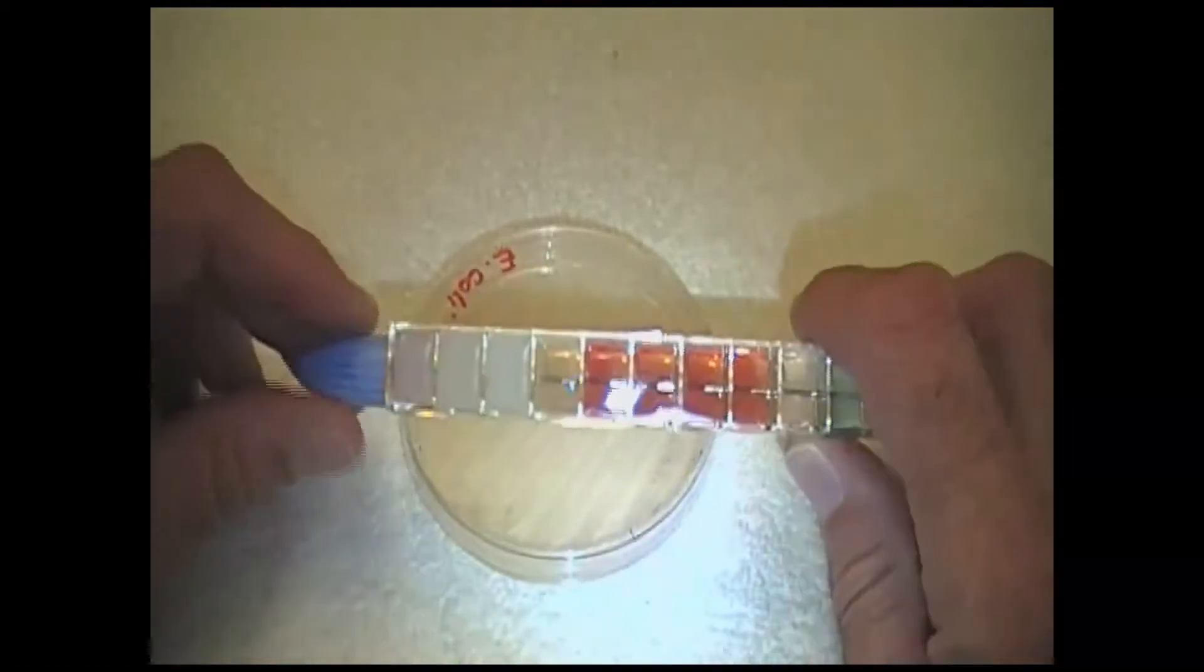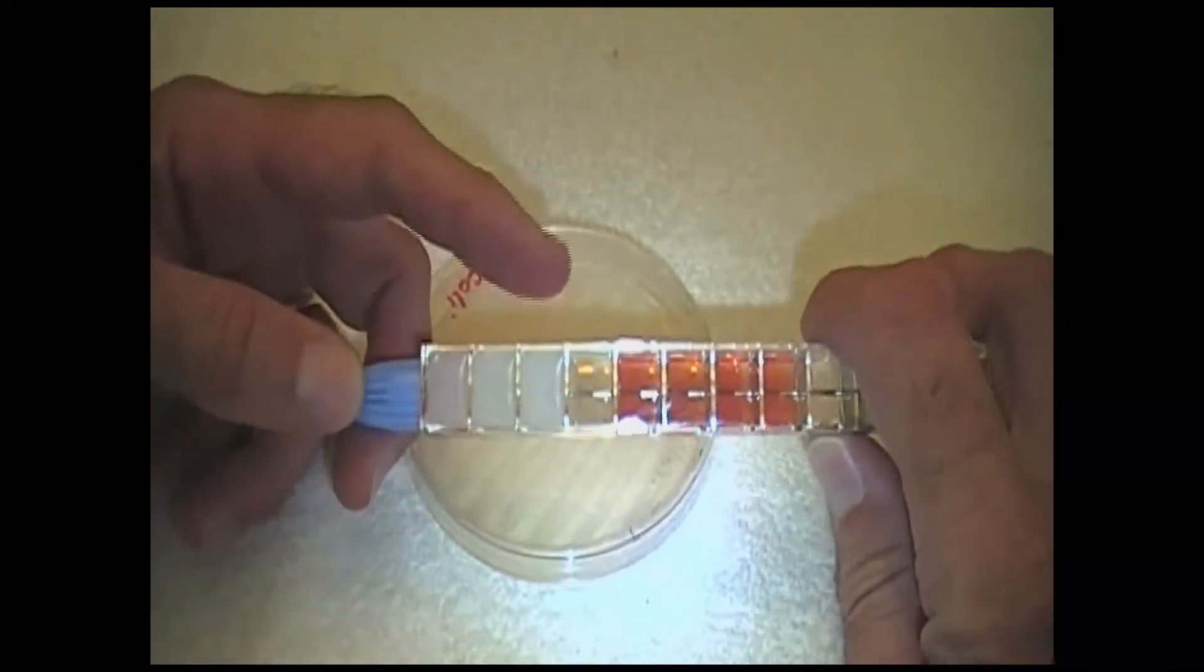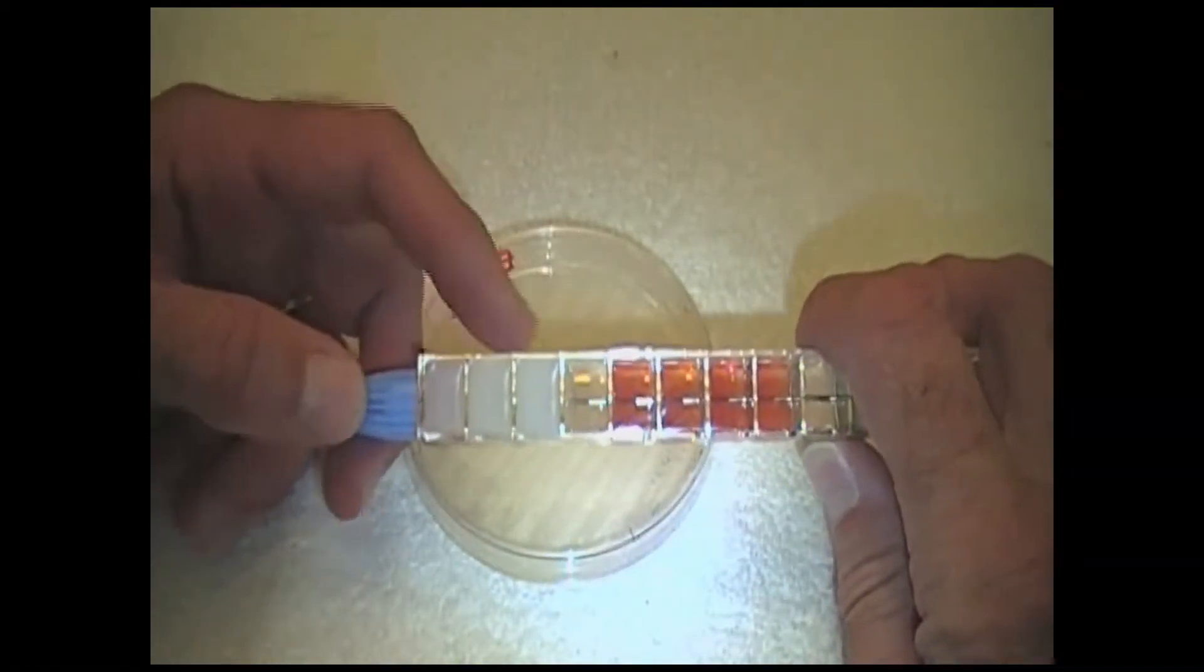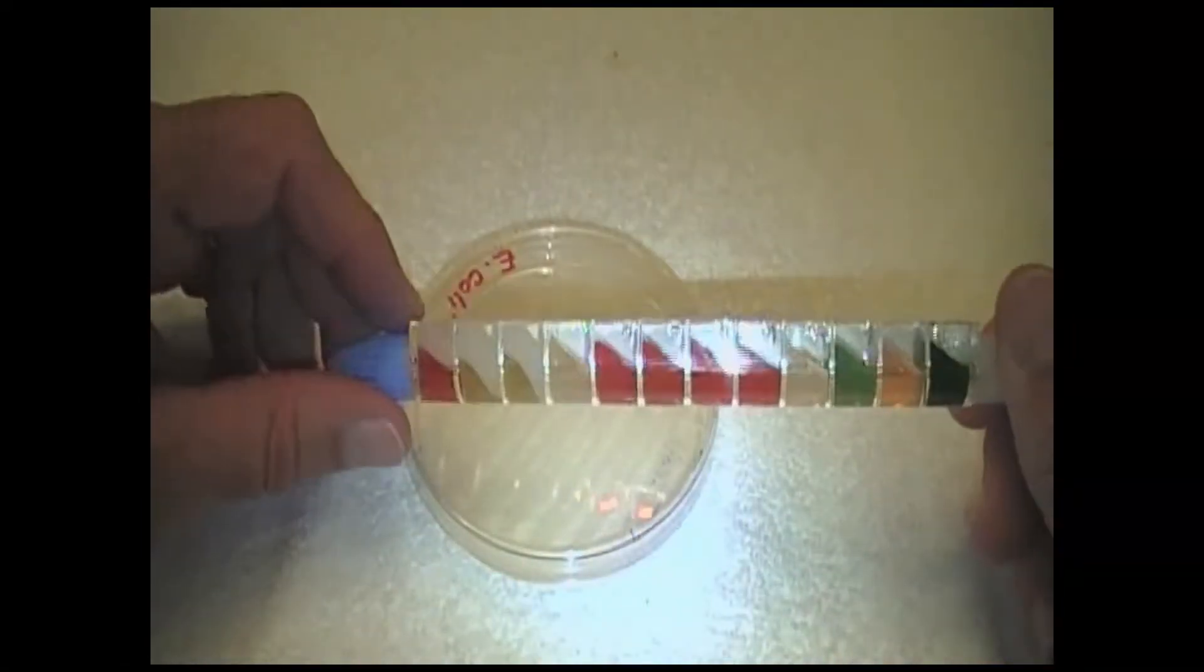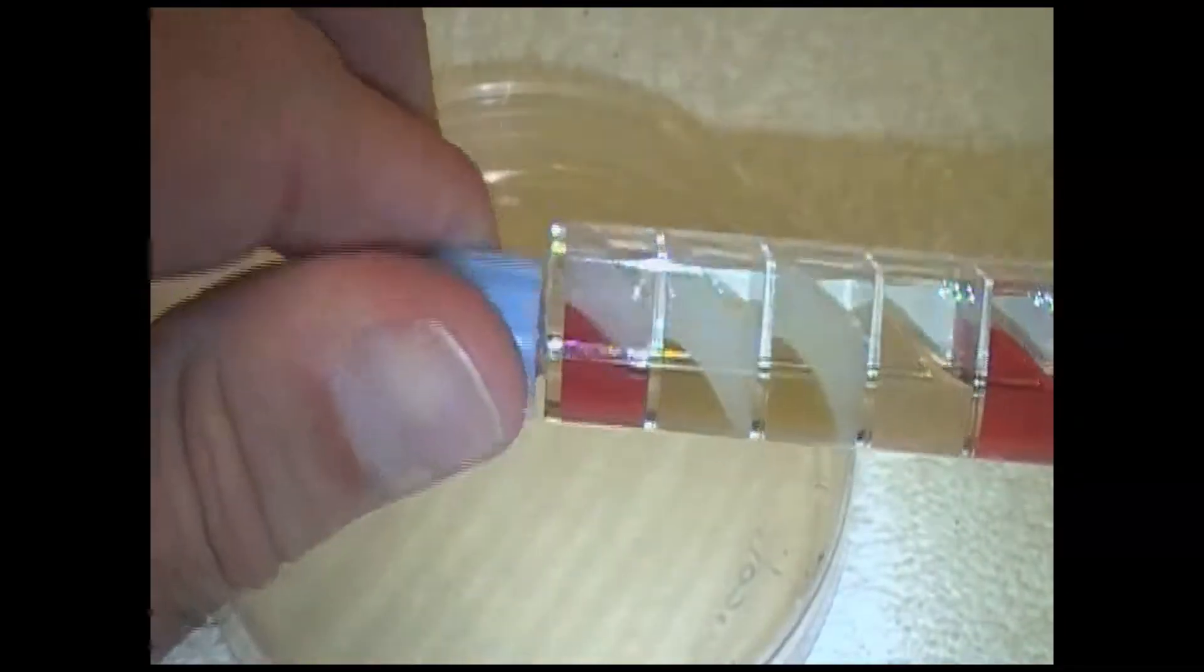These are some sugars. On this end, you can see that these have wax on top of them. The wax allows for the creation of an anaerobic environment. In order to inoculate, it's a rather simple process.